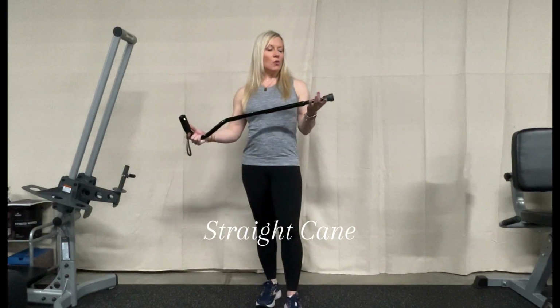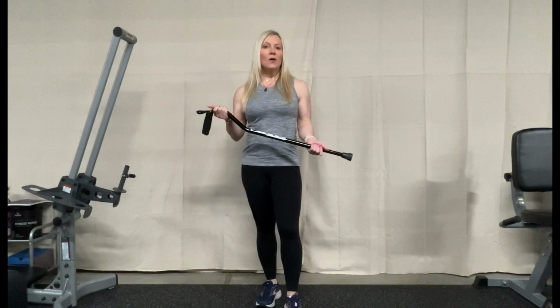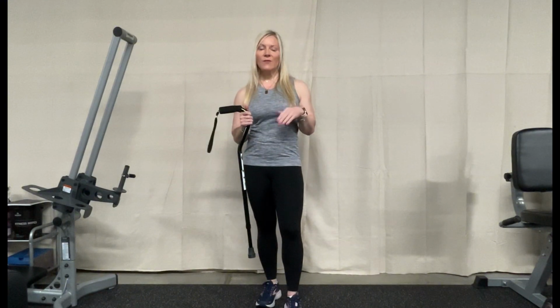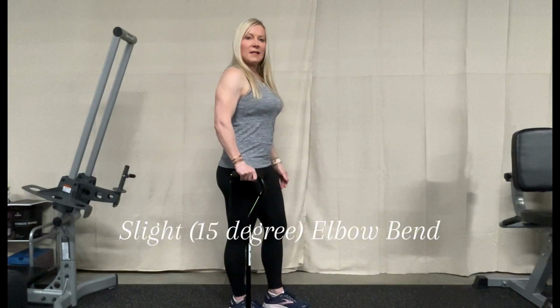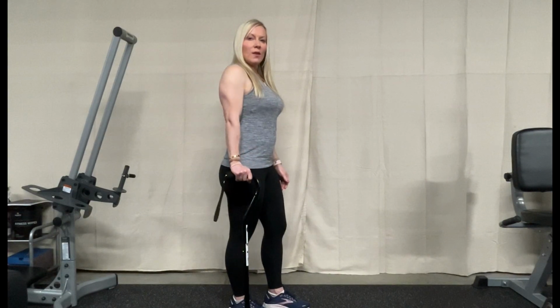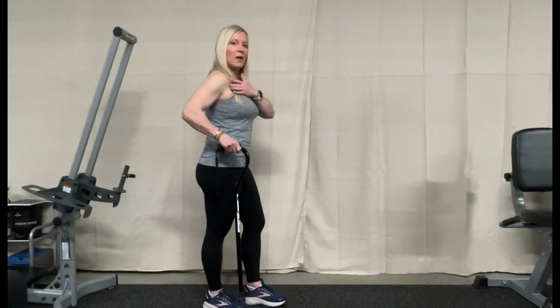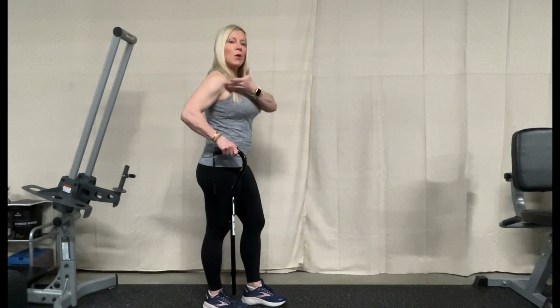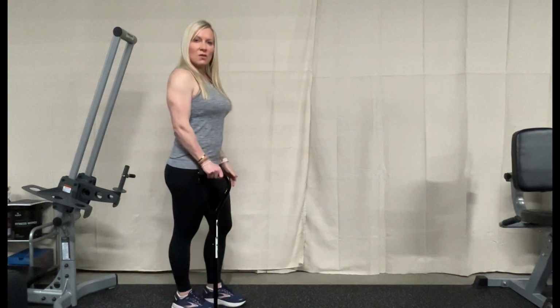With a cane, you always have the ability to adjust, and I went ahead and adjusted this cane to my height. I'm pretty small, like 5 foot, 5'1" on a good day. What you want is the cane to be right at your wrist. The inside of your wrist is the proper measurement for you. You want just a very slight elbow bend for when you're walking. You don't want that elbow completely locked out, and you don't want it too high, because if you notice, whenever I have this cane higher, it's putting pressure up here on my shoulder. It's rounding it front. So we want more of a relaxed use of that cane.